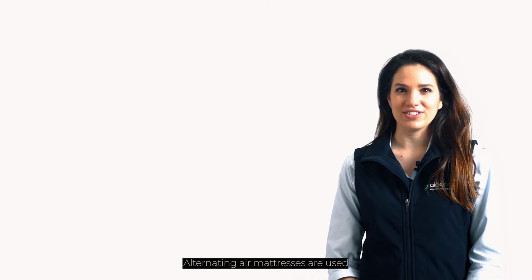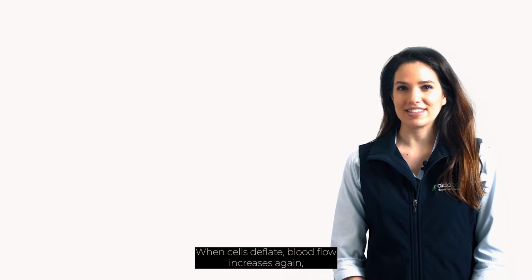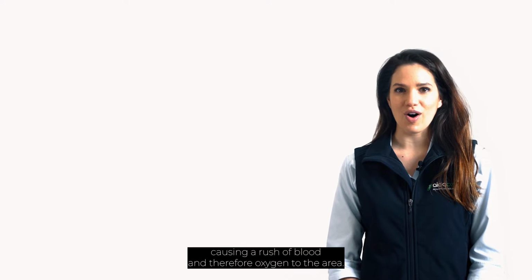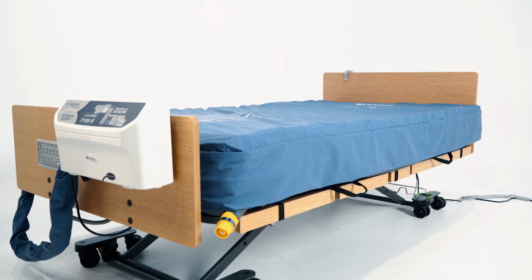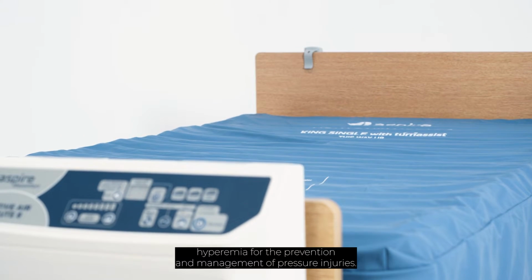Alternating air mattresses are used for the prevention and management of pressure injuries and work on the principle of pressure on, pressure off. When air cells inflate, pressure is applied to the body's surface, creating a brief restriction of blood flow. When cells deflate, blood flow increases again, causing a rush of blood and therefore oxygen to the area. This is known as reactive hyperemia and is the body's normal reaction when we change position. Alternating air mattresses utilise this principle of reactive hyperemia for the prevention and management of pressure injuries.